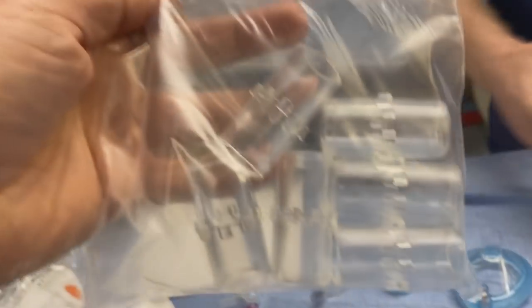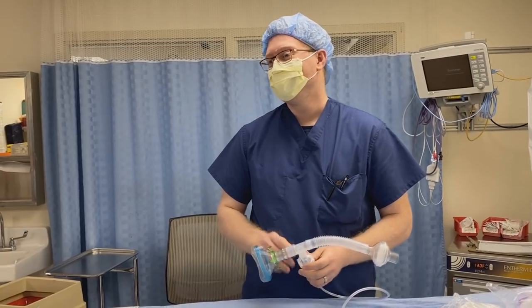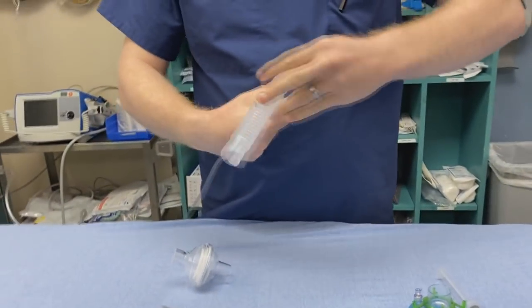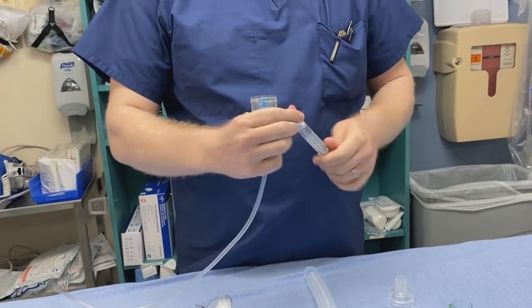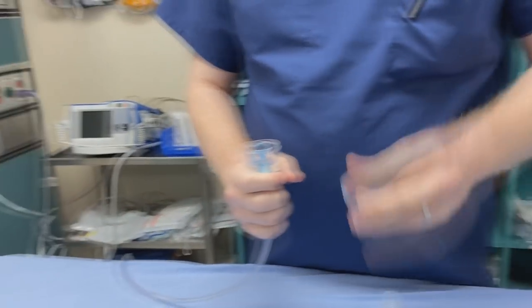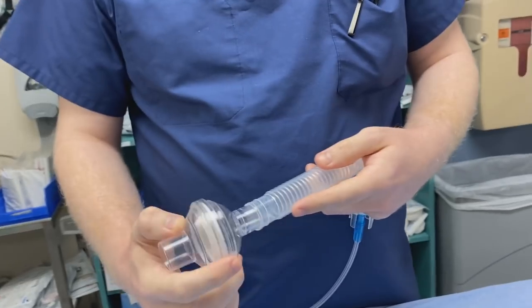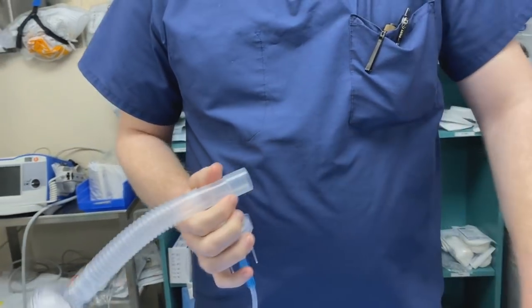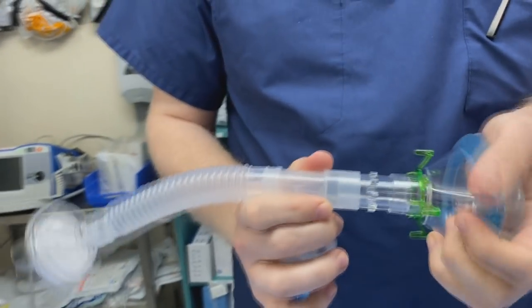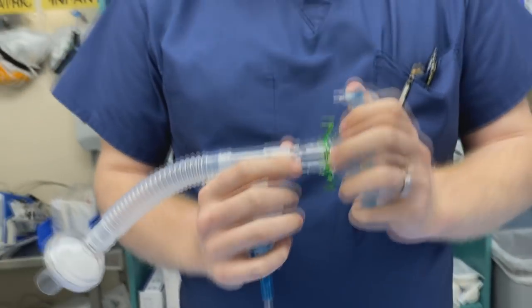We were stumped for a minute, but now we've got the solution — these adapters. So life is good. There's your viral filter, and there's the elastomeric mask. Now with your adapter — we should get the name of that adapter; he had the metric size for it — you can demonstrate how to assemble it.